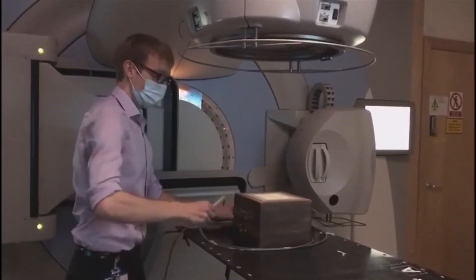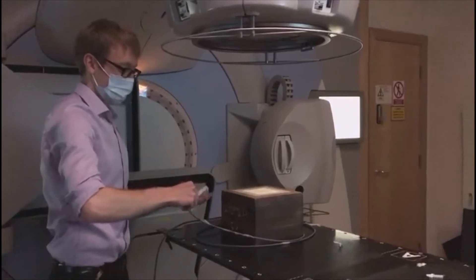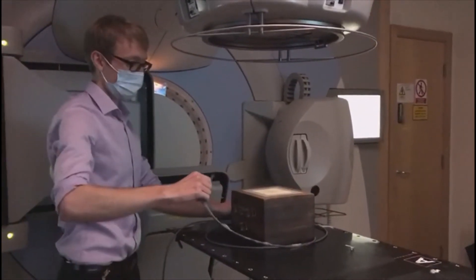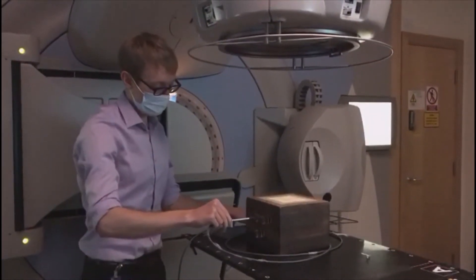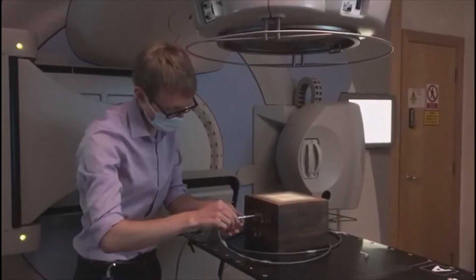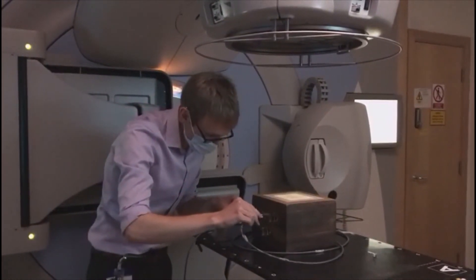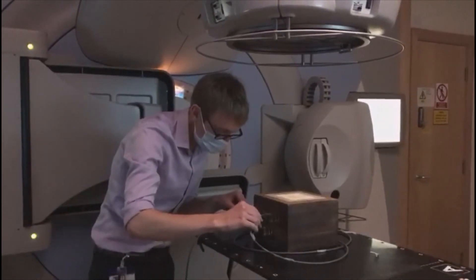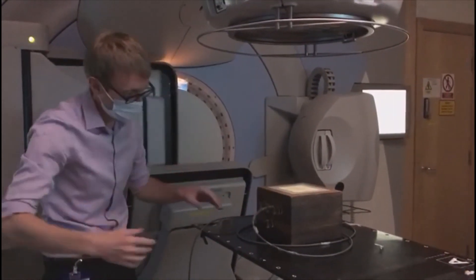I'm going to take my chamber and place it at a point inside this block of solid water where we know what sort of response we're expecting from it, and this can then be corrected to determine what dose would actually be delivered to the patient.